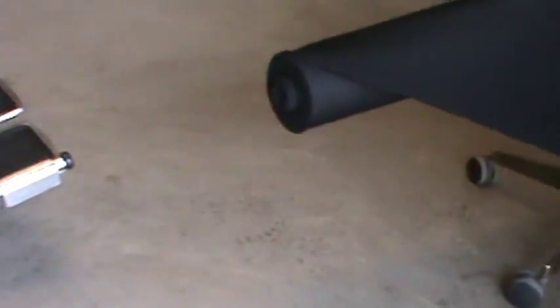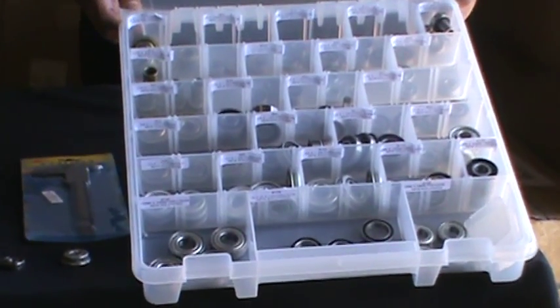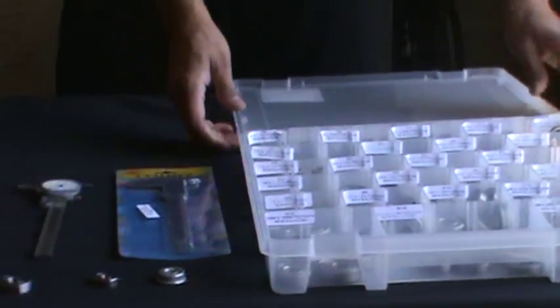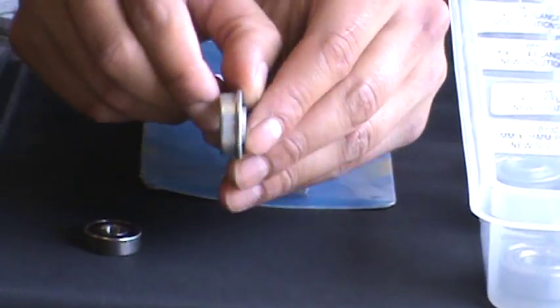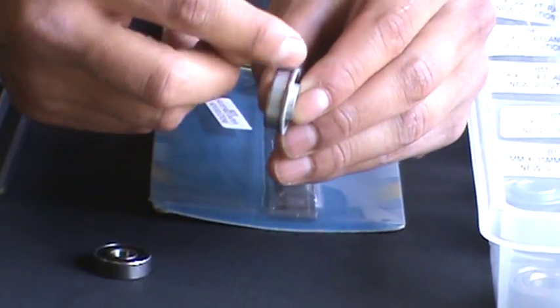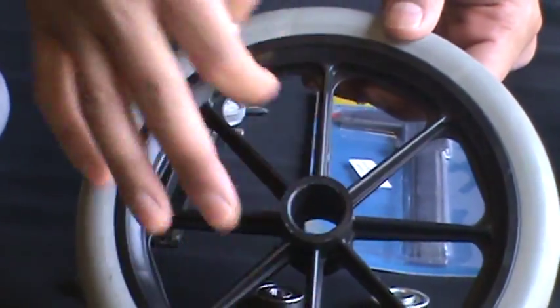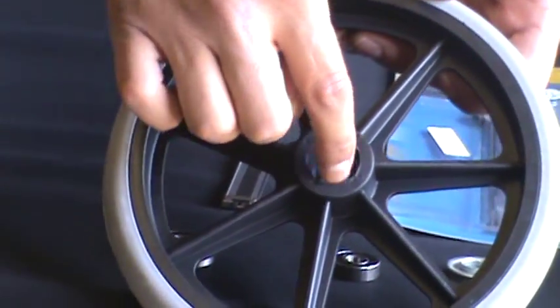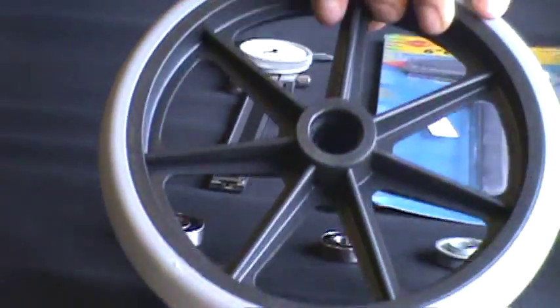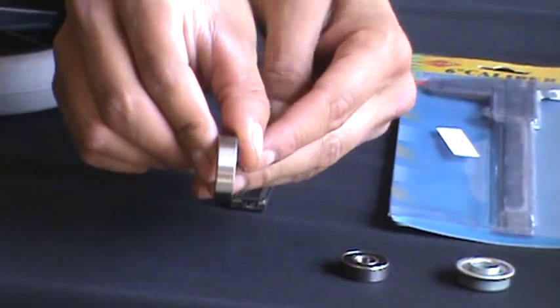There's a large assortment of bearings that go in wheelchairs and scooters. There are two different types. There's the flange bearing, which, as you can see, has a flange around it — that's to keep it from falling through a wheel without a step in the middle, as opposed to one with a step in the middle. A precision bearing will go in the one with the step. This is a typical precision bearing.